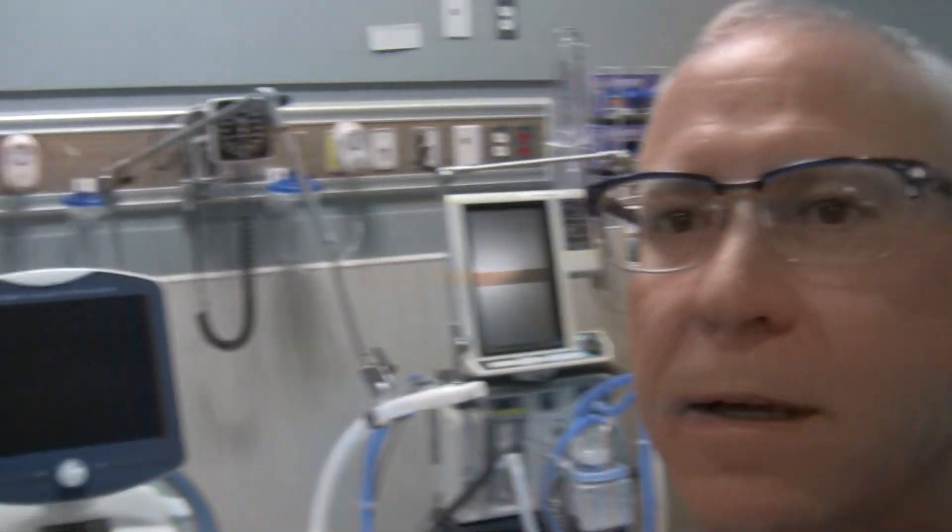Hey, how you doing? George here. What I'd like to do today is show you how to set up a PB980 ventilator to use on a patient. One of the nice things about the PB980 is when you set it up, you can see and make all your choices on the main screen. So let's go to the ventilator, fire it up, and see how we do with setting it up.